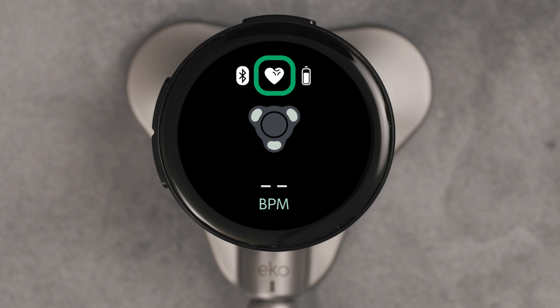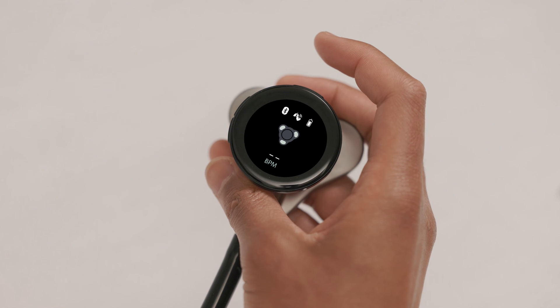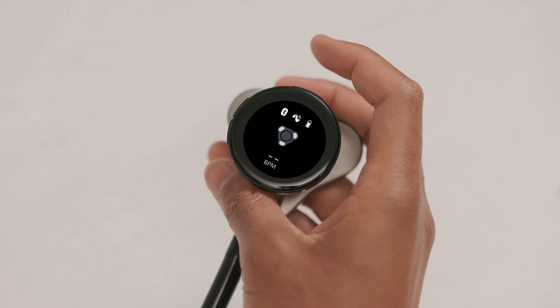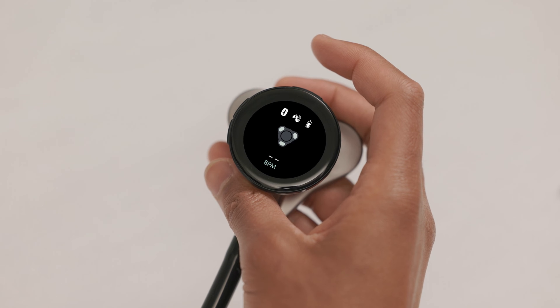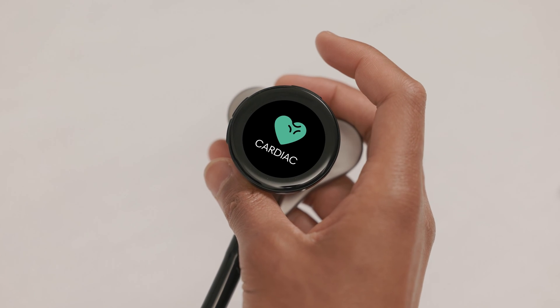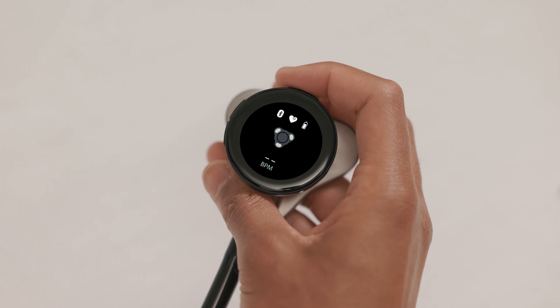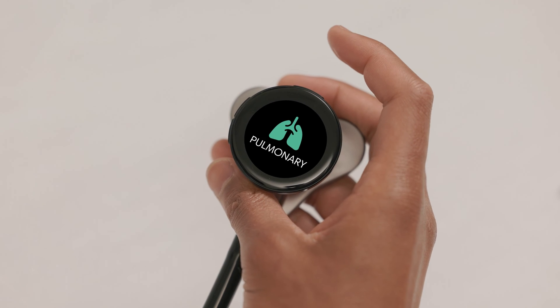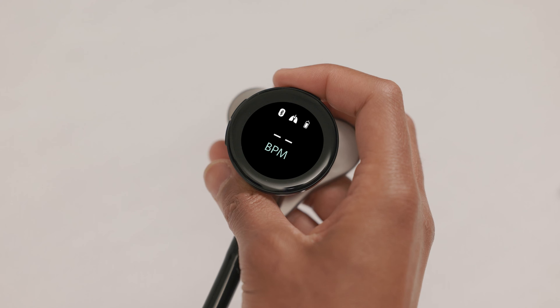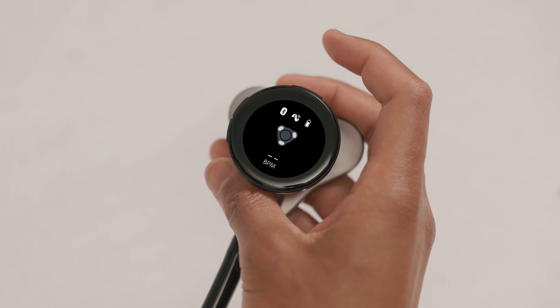The audio filter shows at the top. To change to a different filter, press the top button for less than one second between each filter. You can choose between cardiac, pulmonary, and wide. Wide is for all use cases. Each filter has been optimized for the unique frequency of these sounds.